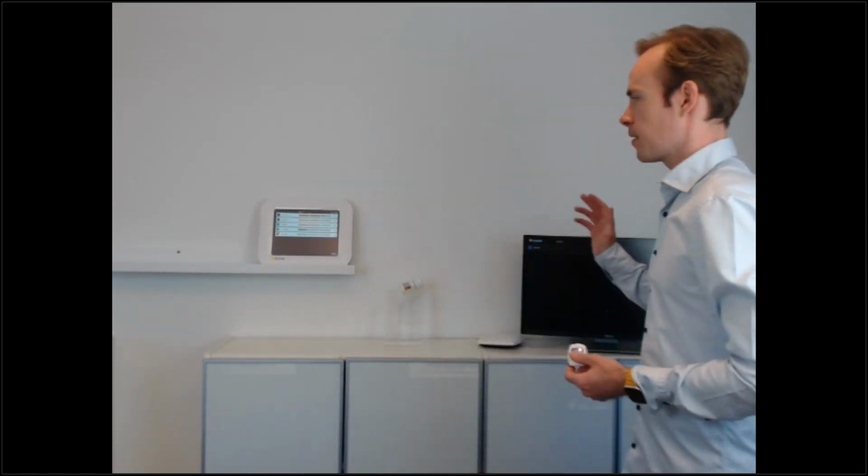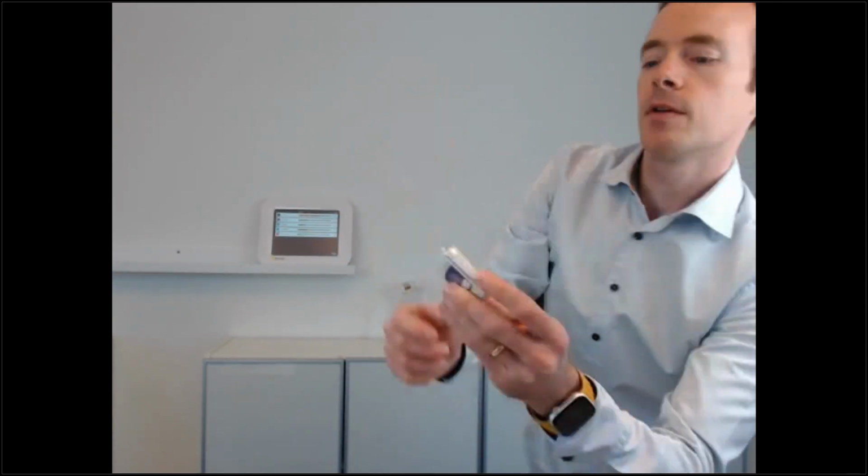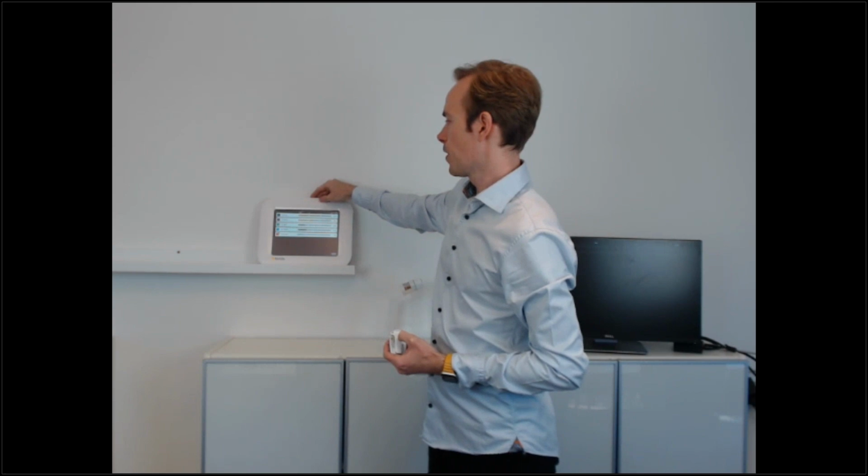Naturally, we have a few units here that need power. Let's start with the dosimeter. The dosimeter uses a coin cell battery, CR2450. It lasts for roughly 1 to 2 years, and you get a warning a couple of months before it's out. When you run out of battery, you can unscrew the top 2 screws here, take off a little plate and just replace it yourself. This one runs on 12 volts, but you use a normal power supply unit, 230 volts here in Europe.